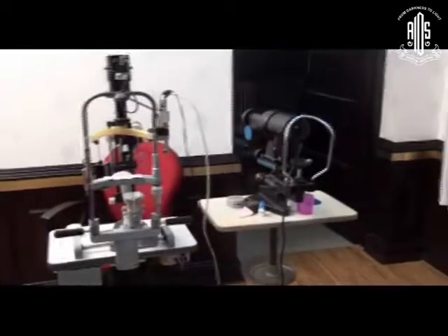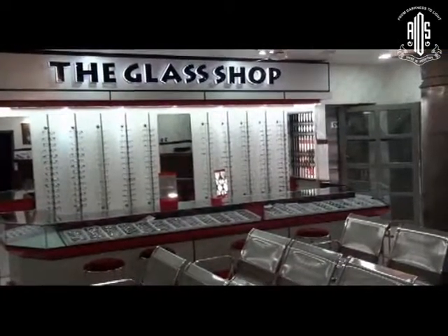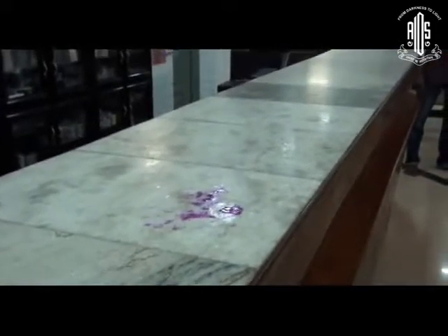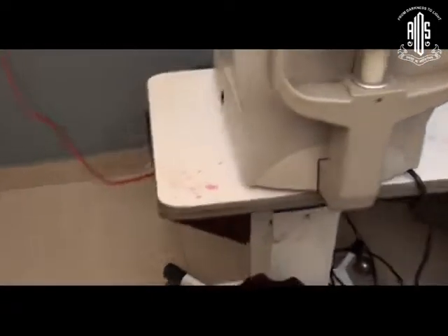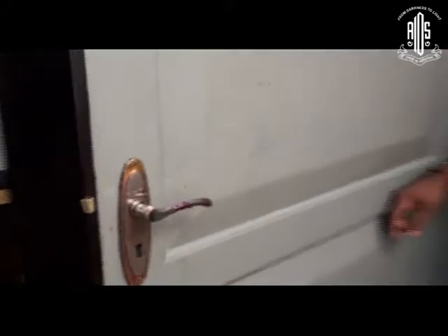In the video, you can stop me in between to ask questions. Look at the countertop — you can see where his hand has touched. This is the autorefractor; see it on either side. You might wonder how the contamination reached the other hand — probably he was resting his hand like that. These are the places that need to be disinfected very frequently.